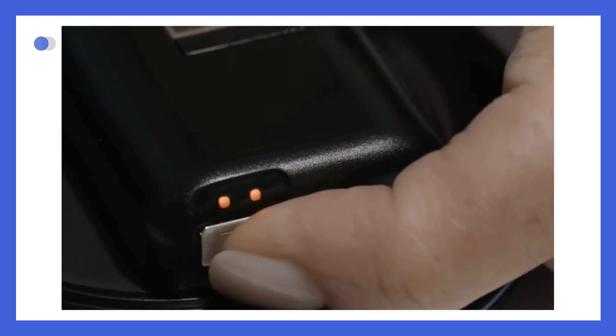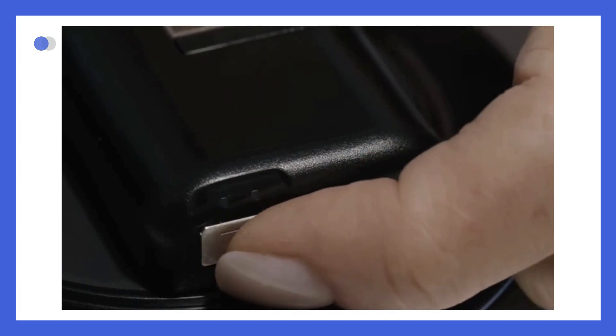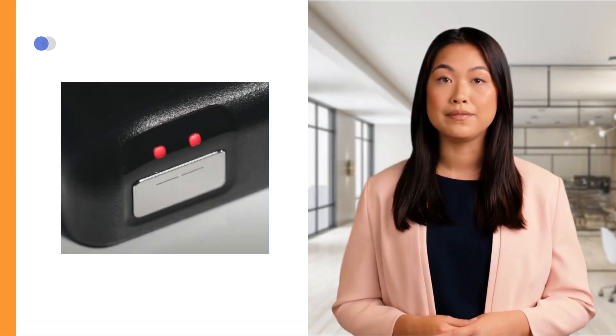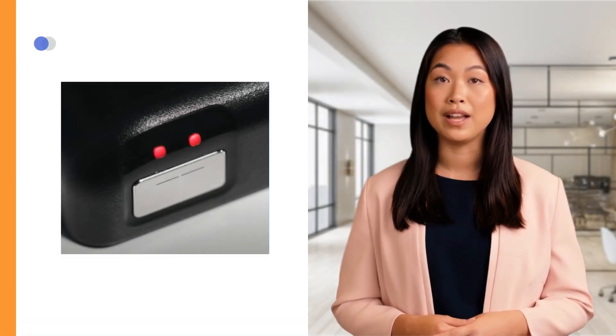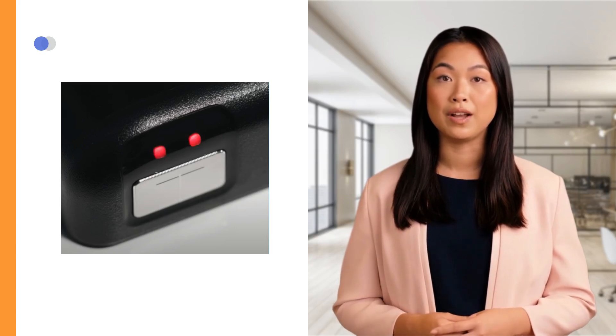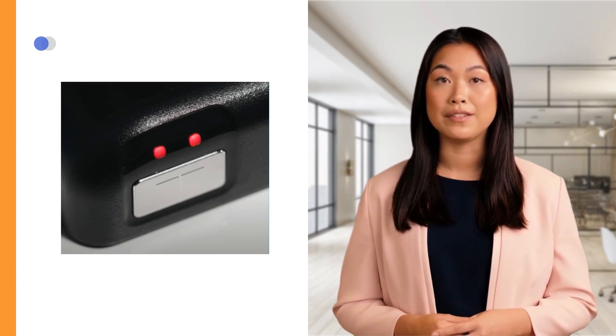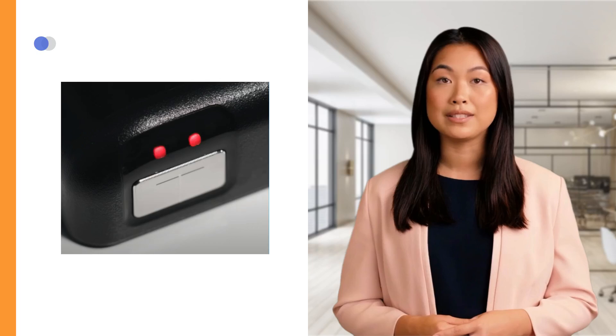After a few seconds, the pump status lights will light up and the pattern will display for 10 seconds. Each color has a different meaning. Red represents an alarm or malfunction. This means that all insulin delivery has stopped. If you see this, please check your pump as soon as possible.